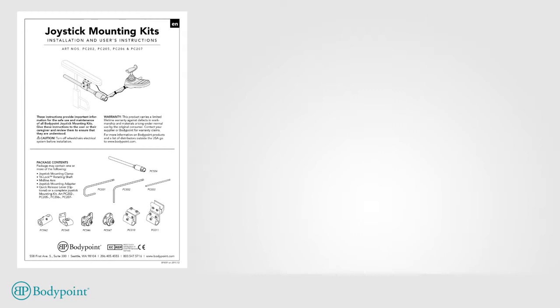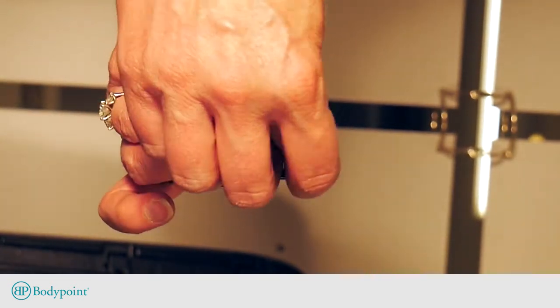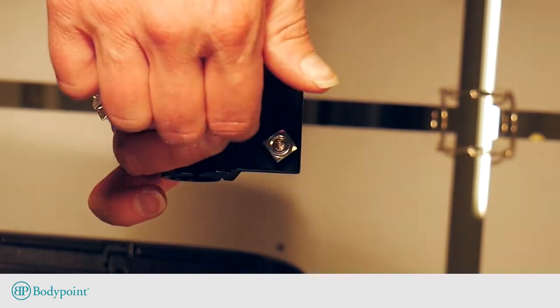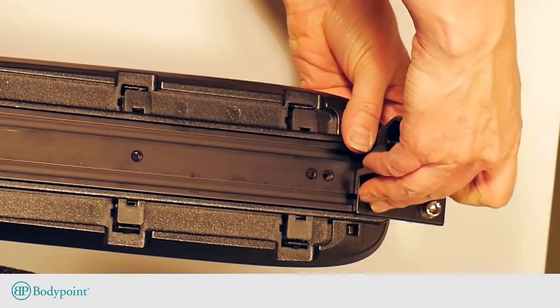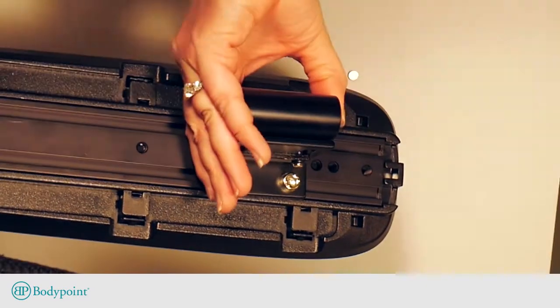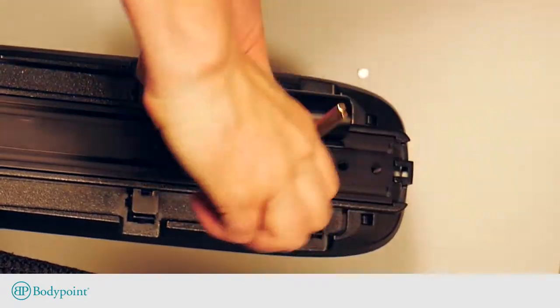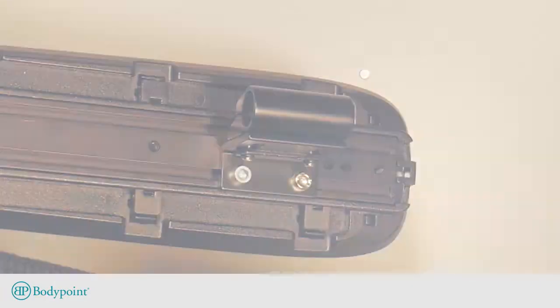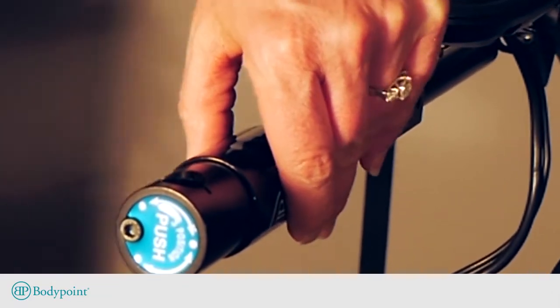Referring to the TriLock midline mounting instructions, choose left or right side mounting for the clamp. Select the M6 square nuts that fit into the Permobile track. Attach the rail mount clamp by loosely installing the M6 socket head screws and M6 square nuts, then feed them into the Unitrack rail. Mount the clamp as far forward as possible for the strongest position. Slide the TriLock rotating shaft into the mounting clamp and set to the desired rotation for left or right-handed use.